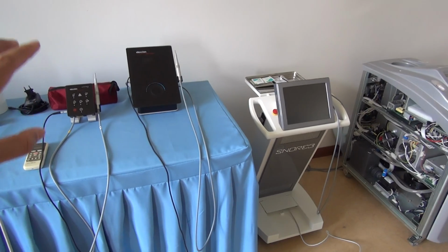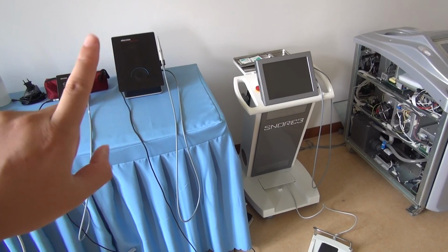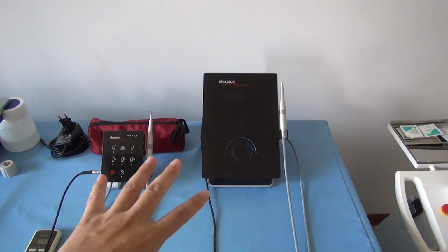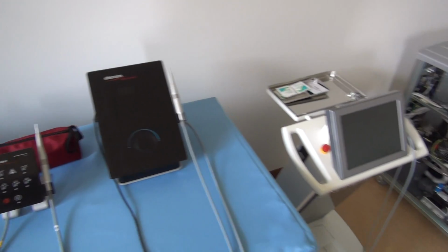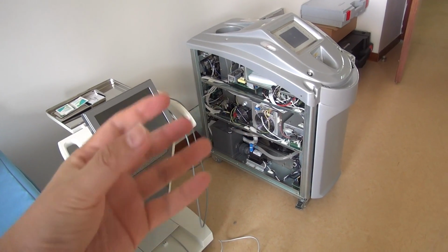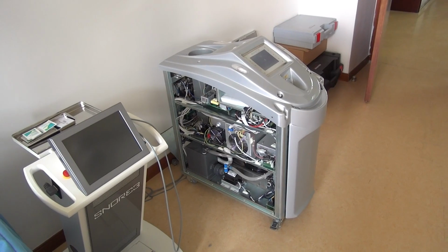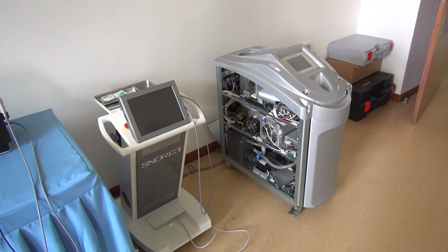We have mainly three models of diode laser equipment. This one is the biggest, and we have two small models. These two we sell more all over the world. The Er:YAG laser, the big laser machine, is more used for hard tissue, for example, for the teeth. And for me, that is a kind of useful equipment.